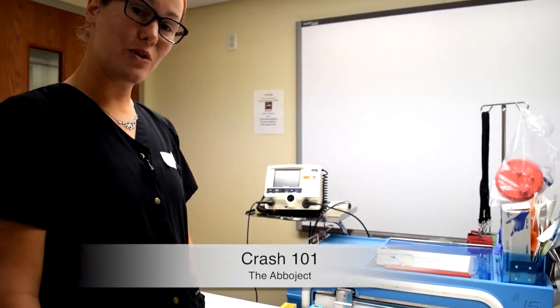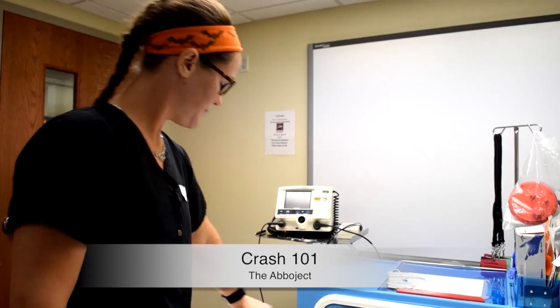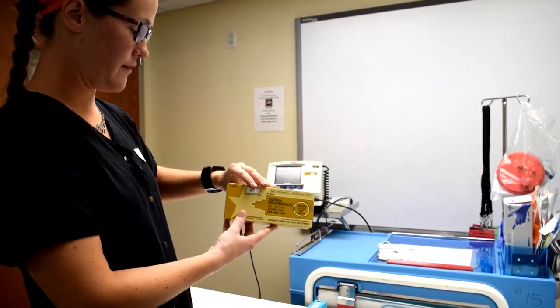So now I'm going to demonstrate how to use an aboject syringe, and we'll use the sodium bicarbonate for this demonstration.